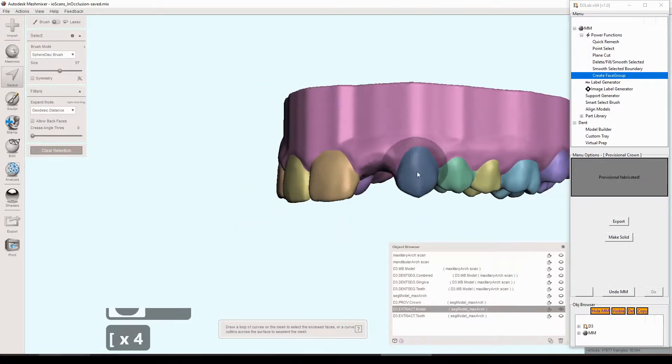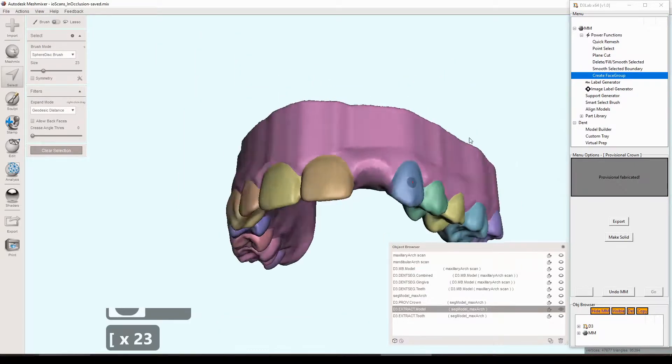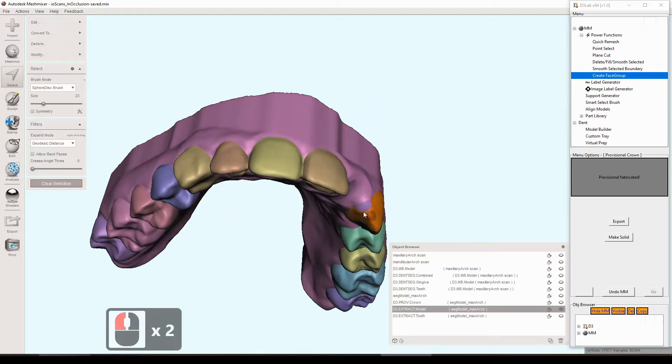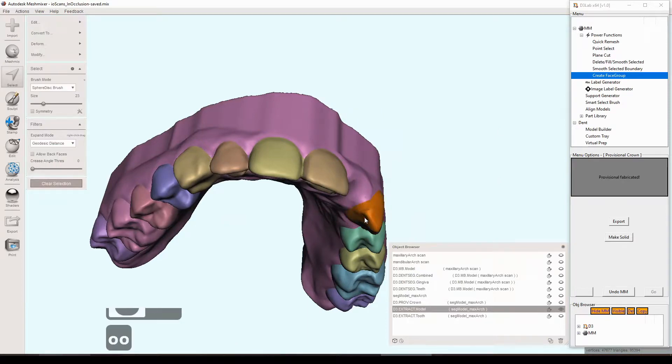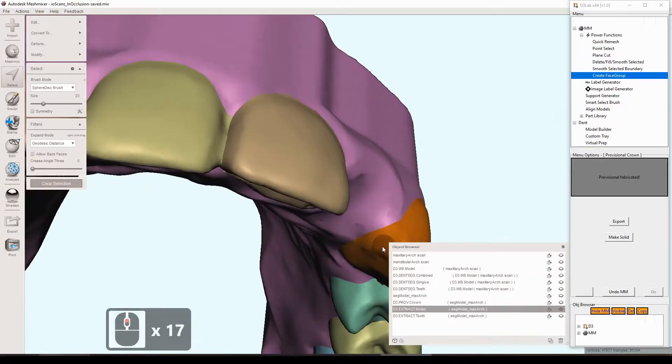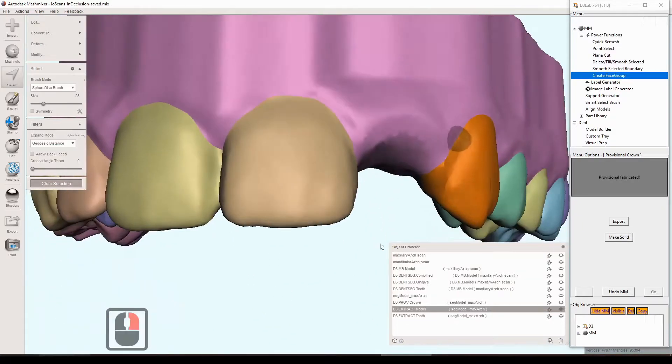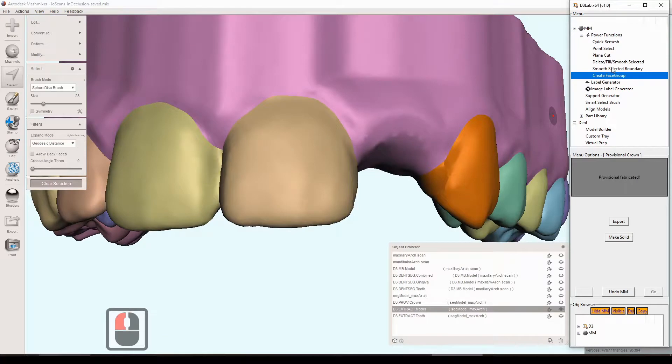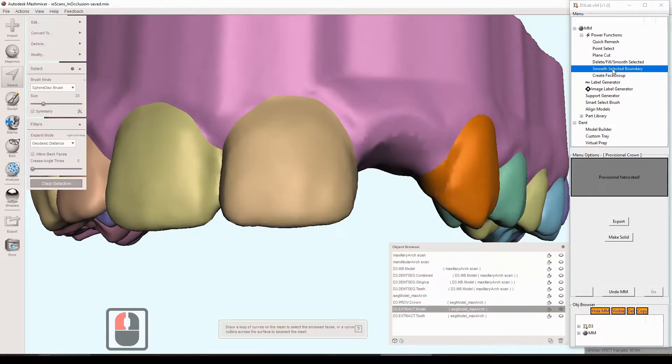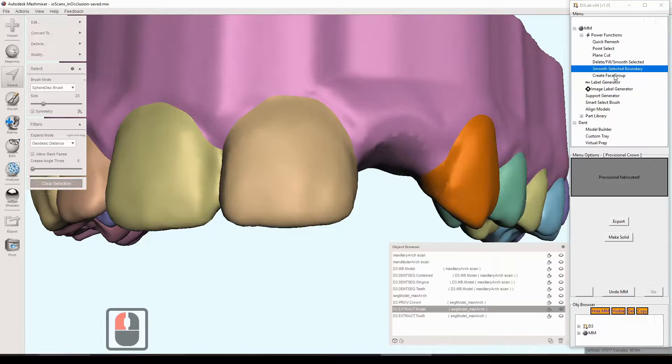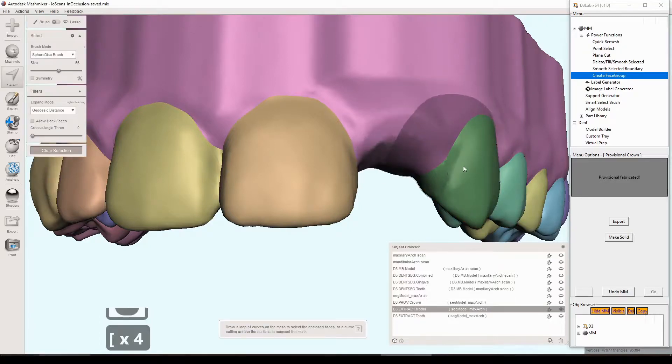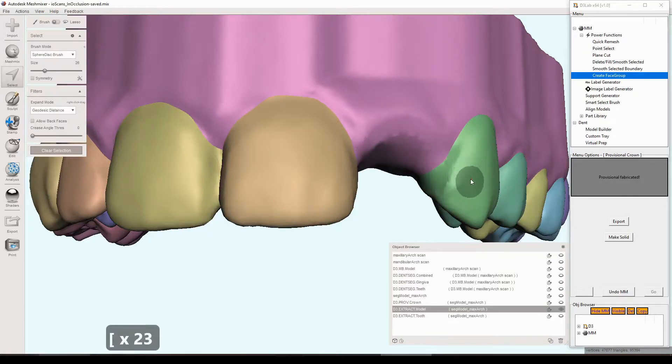And then all we have to do now is just those adjacent teeth. There's one or two other face groups that were a result of the virtual extraction that we want to add back to the tooth. So just kind of click those. Make sure everything is selected there. And once that looks like it's pretty much just the tooth, we can do the smooth and create face group. Or if you're happy with the selection, you could do just the create face group, but we'll do smooth and create face group. Last thing, we'll go to the other tooth. And again, you don't have to do any of this. This is just kind of like maintaining a clean, organized workspace. That's it. You definitely don't have to do this. It just helps with some other tools down the road, potentially. So that's the only reason I'm doing that. Smooth, create face group.